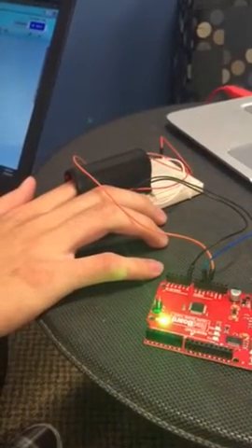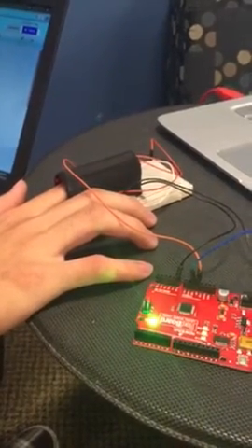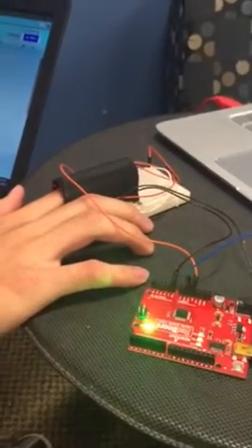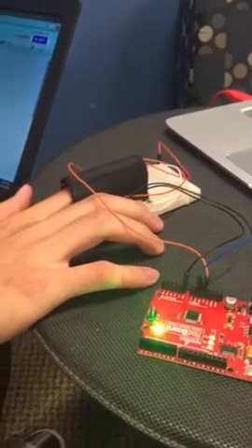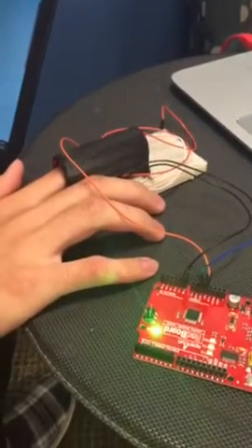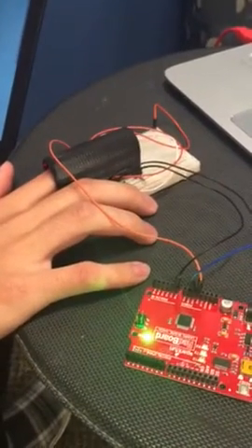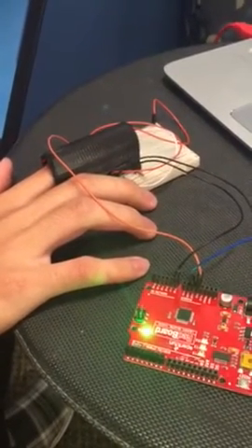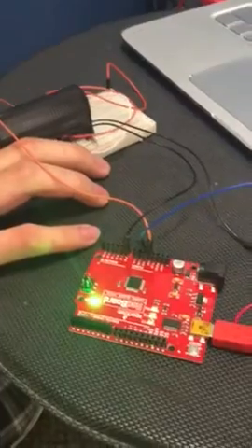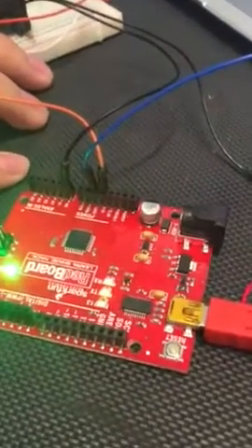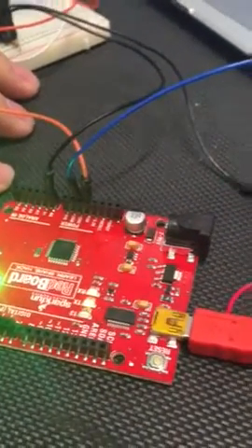This is a demonstration of our heart rate monitor using MATLAB programming. The finger is placed on top of the photodetector, which is covered by a 3D printed covering to minimize ambient light. The wires supply 5 volts to both the LED light and the photodetector, which reads the voltage into MATLAB.